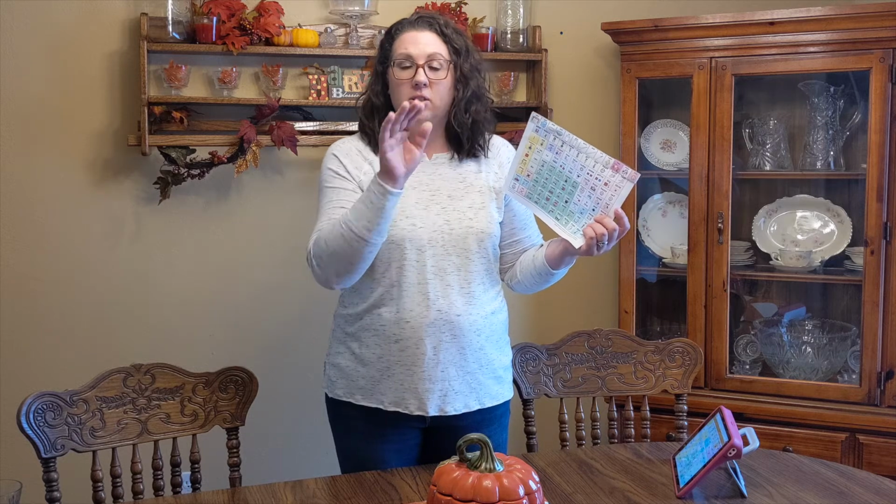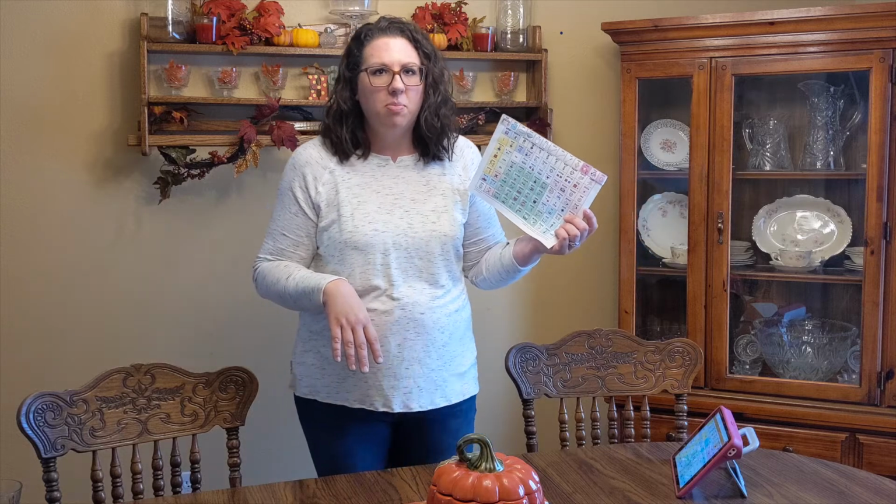Mine is from Saltillo, that's what we use in our house, but whatever system you may use, if it's LAMP Words for Life, Snap Core, Proloquo, if you're using CoughDrop, go to those vendors' sites and you can download these menu communication boards for free so that you can have them in your purse, backpack, and around the house as well. So I have the Tell Me vocabulary version from Saltillo's site.